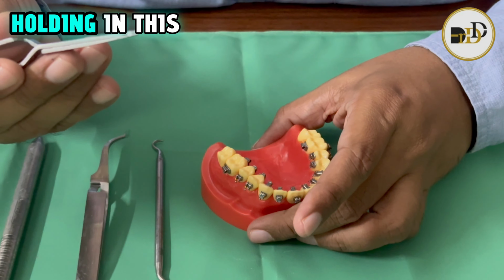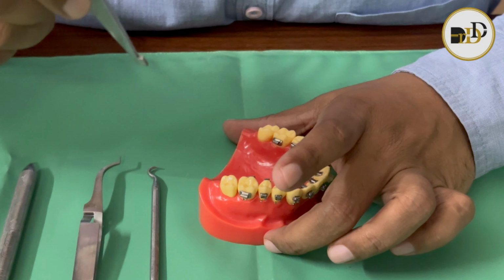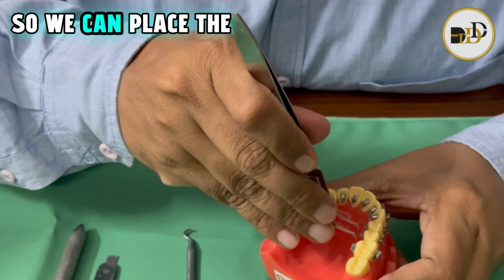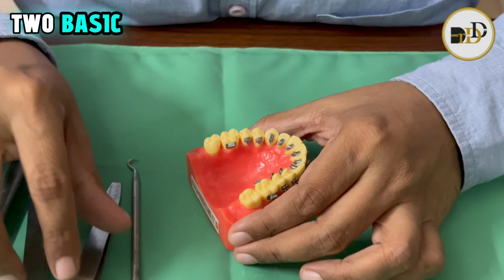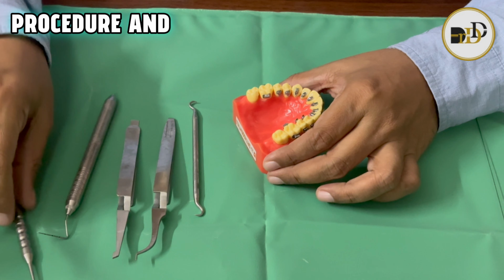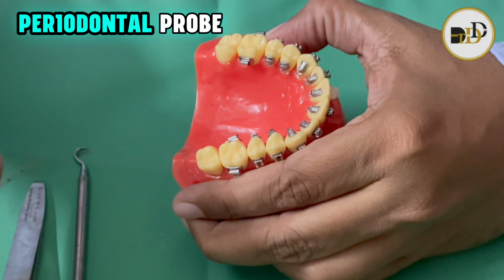We will be holding it in this way for the upper, and in the lower we will be holding it in this way, and this is for the posteriors. So we can place the brackets in this way. These are the two basic instruments required for the bonding procedure, and for checking the measurement we can even use the periodontal probe.